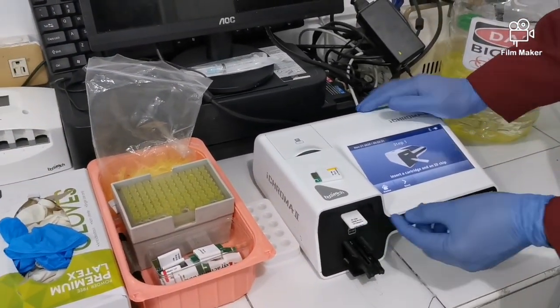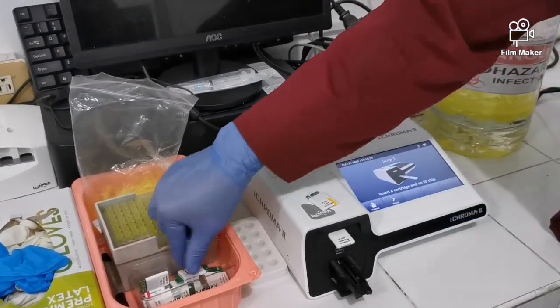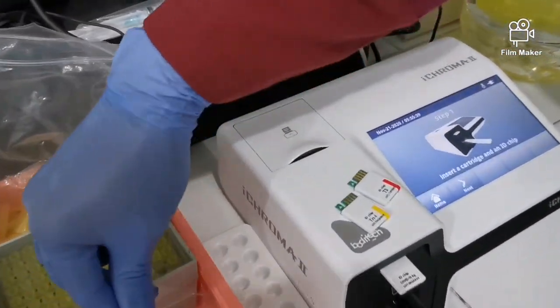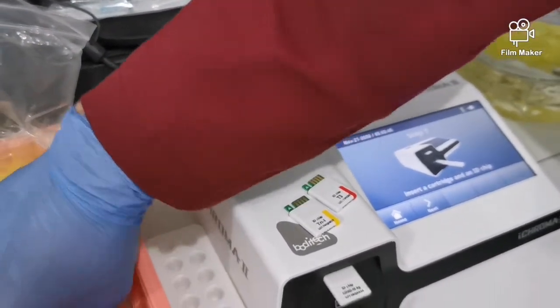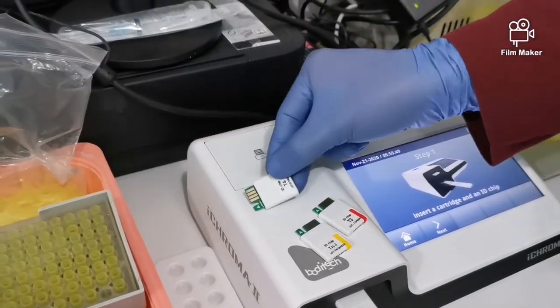Andyan yung chip niya. So depende kung ano yung gusto mong i-test, meron kang different chips, okay? So ayan, T3 for our thyroid function. Ayan. Troponin for our cardiac function. Kapag, ayun, nagma-myocardial infarction ka. Ano pa? Ayan, T4 for our thyroid ulit.